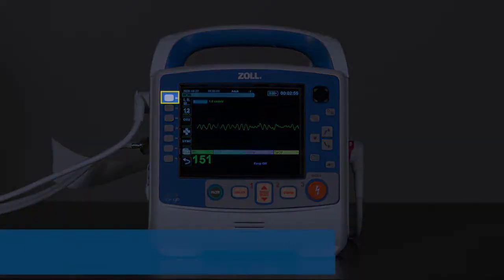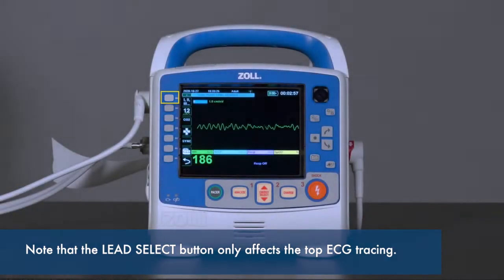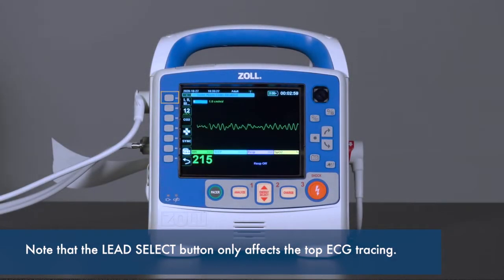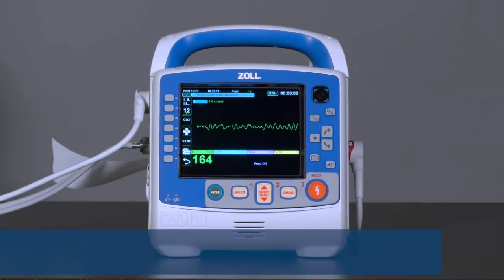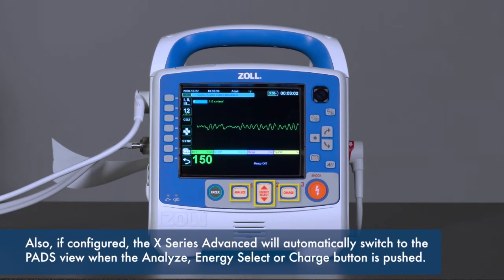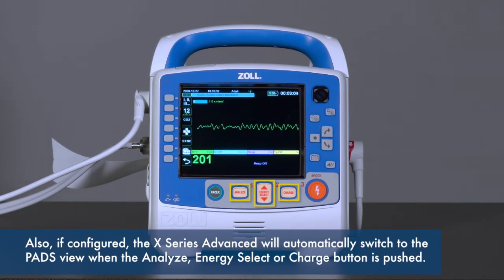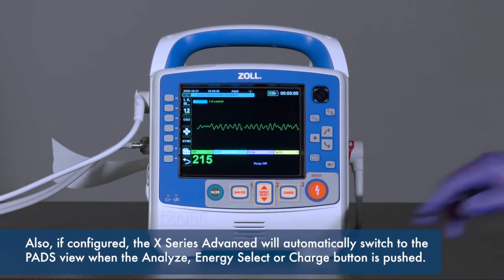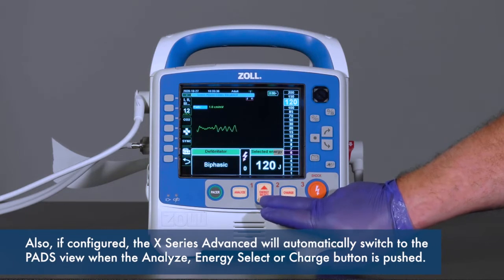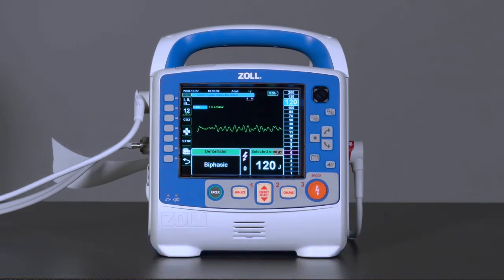Note that the lead select button only affects the top ECG tracing. Also, if configured, the X-Series Advanced will automatically switch to the PADS view when the analyze, energy select, or charge button is pushed.